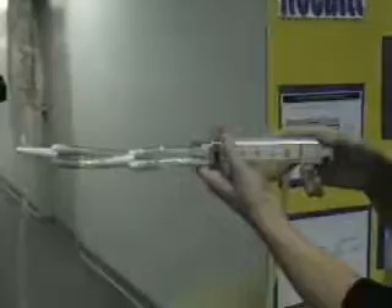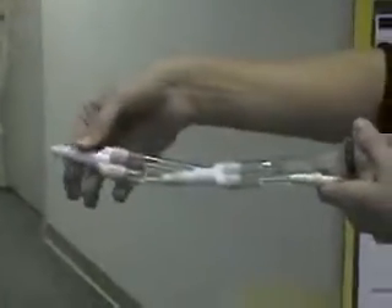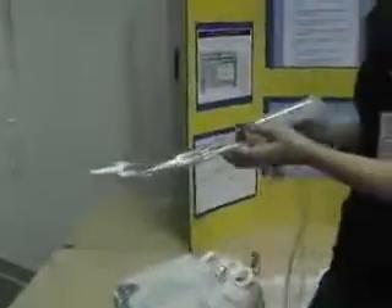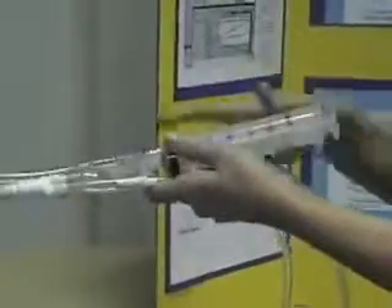What I'm going to show you is the setup of it. It comes with a 3,000 cc bag, the actual tubing for the irrigation, and you'll see the setup right here. This part is going to be hooked up to the patient, and it's going to be a three-way system. You're going to have the drainage bag, which goes right here, then you're going to have the 60 cc syringe, and this part hooked up to the irrigation bag.